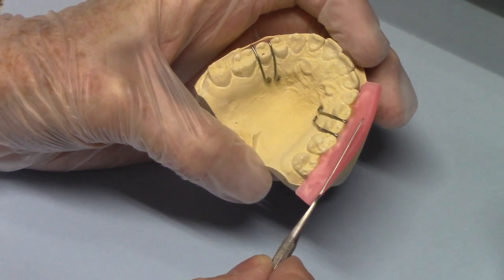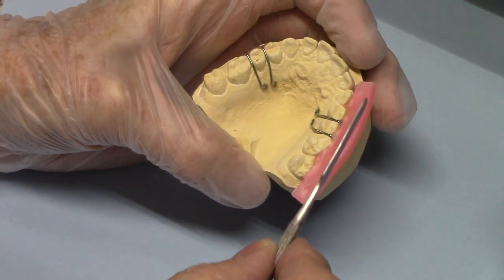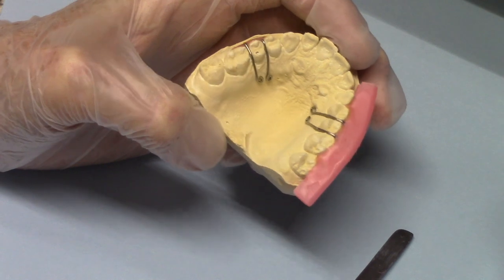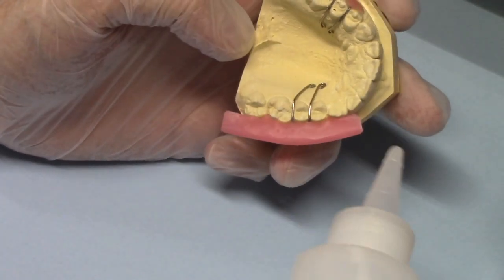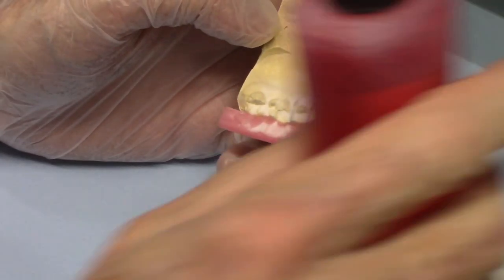The acrylic still will run out here on this shelf though, and you have to either tamp that back with a spatula or something, or cut it off. I want to show you something that will work even better than that. So if I use the acrylic and just go over here and build this up, you'll see.